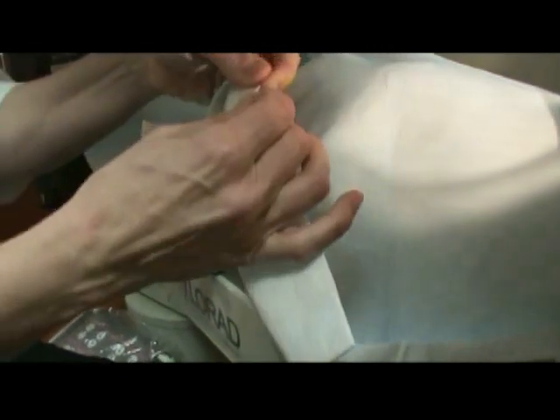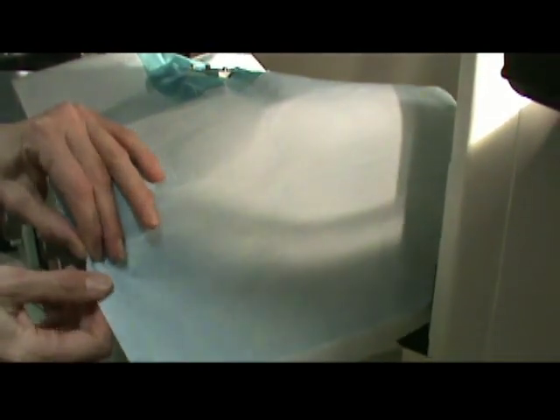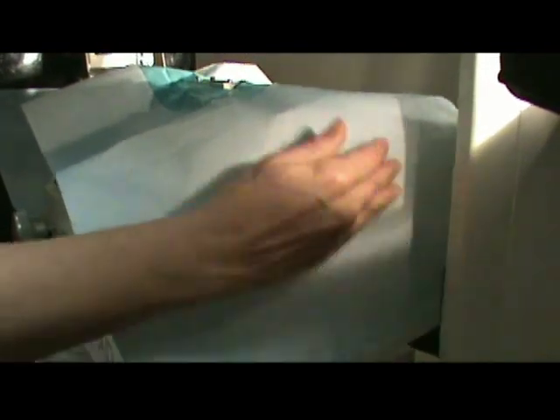On the newer design there's a perforated area here — it's a little longer and you can actually take that off. You'll see the perforations and you can adjust your length that way for the newer devices.